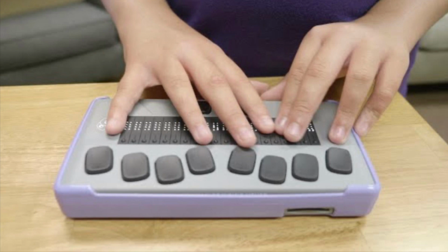I went back to the top with dots 1, 2, 3 and space bar. I could do space bar and dot 4 to go forward a line. Hello. This is just a test for a demonstration. Today is Thursday. I hope you are having a good day. So it went across the entire line because I hadn't yet hit the enter key.